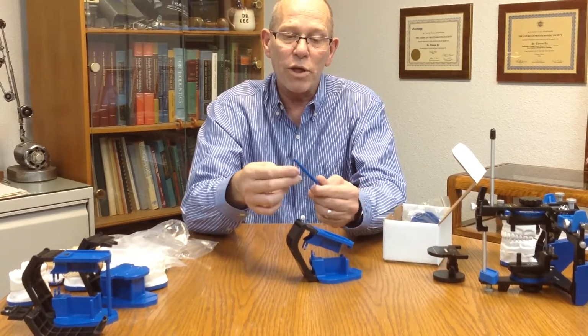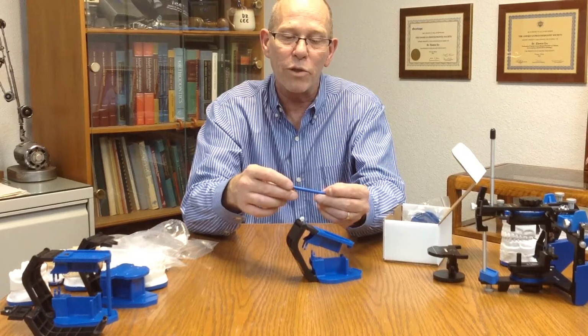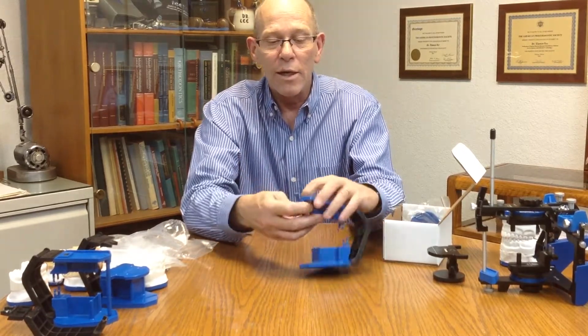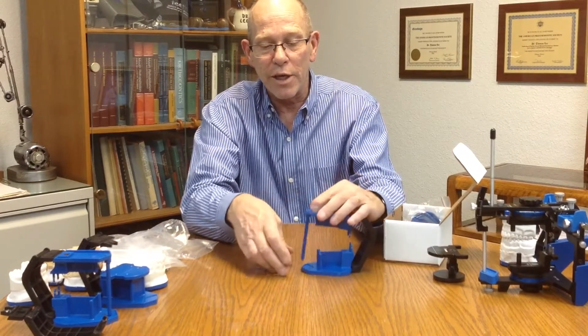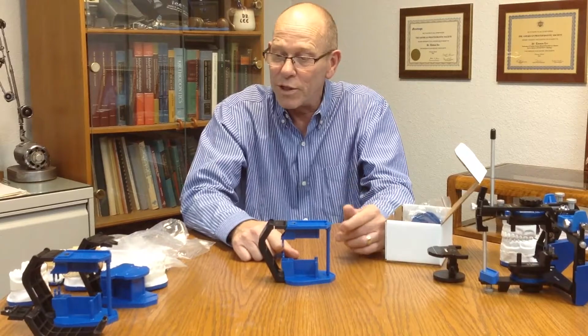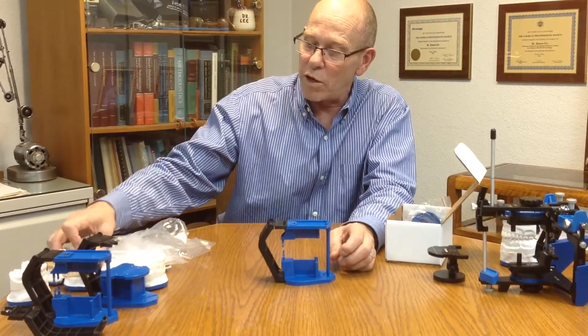which also comes with an incisal pin, and that can just index right to the PAL upper member. The incisal pin has a smoother end and one end where there's a little molding mark, so I like to put that end up into the front here, push that up, and now we have basically an articulator with an incisal pin. Now we can use this with the 3D printed models.